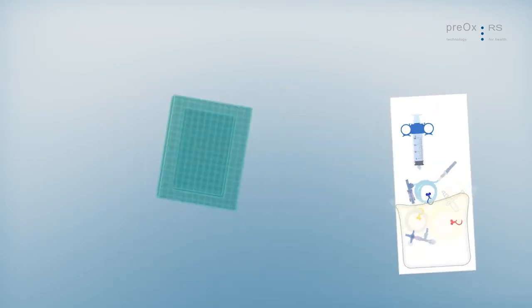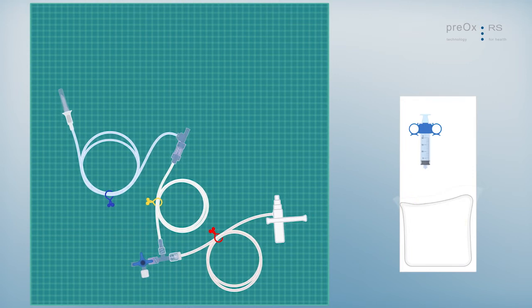Open the pouch and spread the drape. Take the kit and arrange it on the drape. Colored clips tie the individual components.